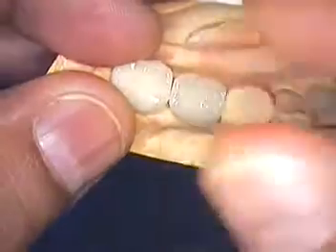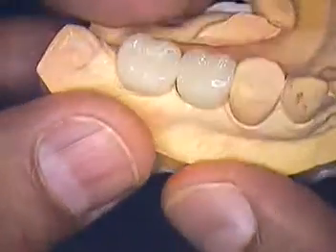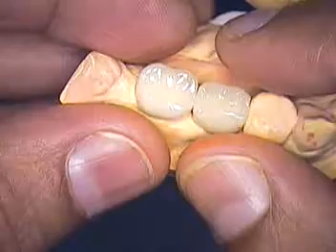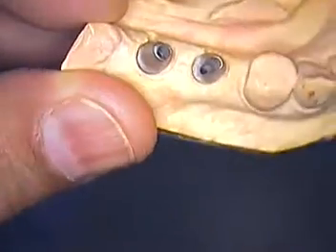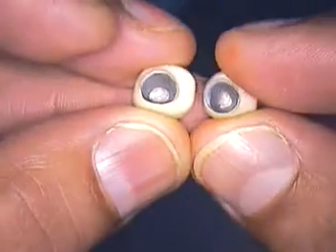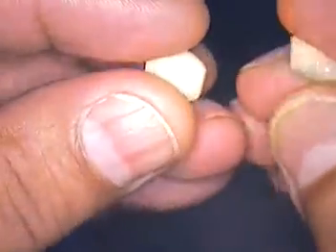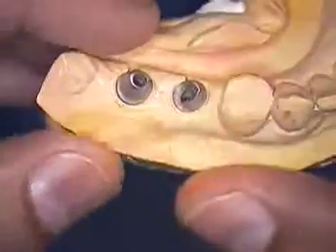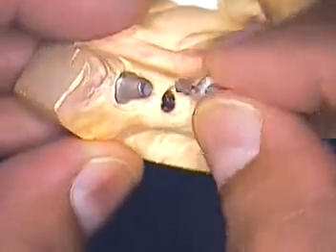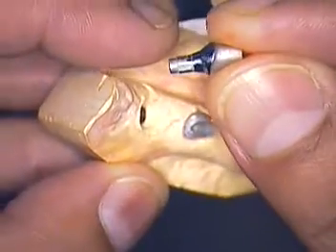So there you have it — the case is ready for trying. We're just waiting on the patient right now, so it gives me a little time to film this for you. Let me just show you again. Here are the custom abutments, and the modification of the crowns to give a modified ridge lap. That's the tissue side, interproximal, and occlusal. The abutments themselves are highly polished, now in the right position, and without a lip.